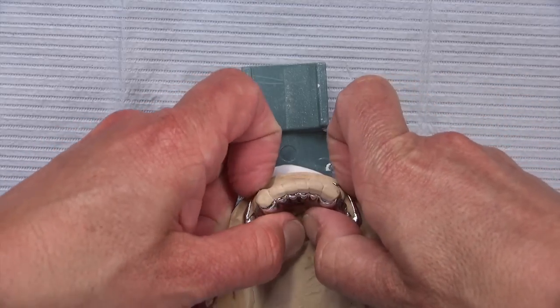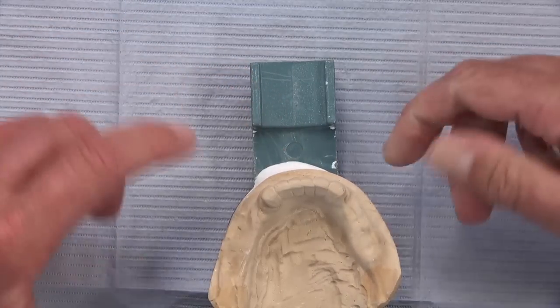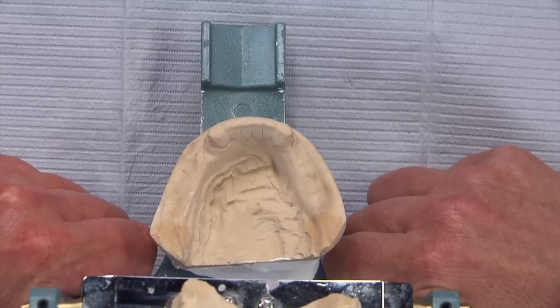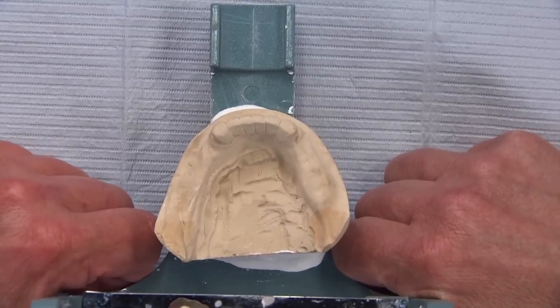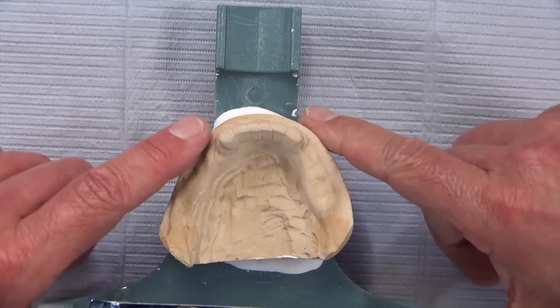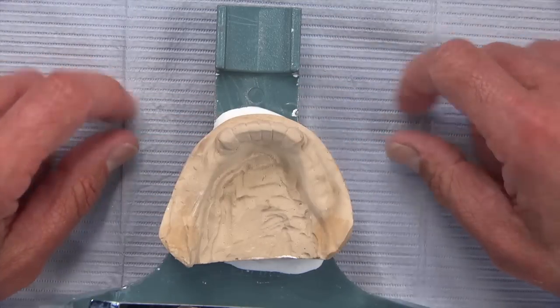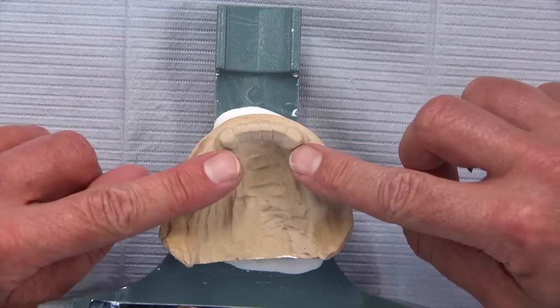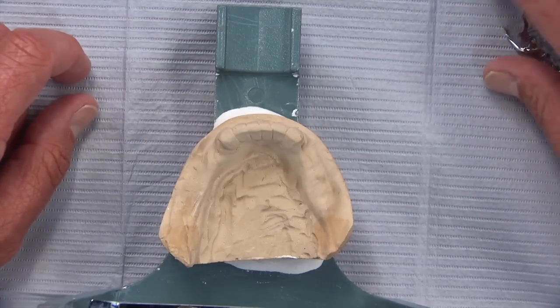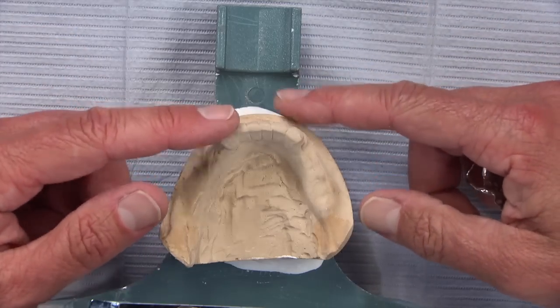A lab has fabricated this bridge and unfortunately no thought has been given to a future possible removable partial denture, a Valplast, a flipper, or anything. Either the lab didn't ask the doctor, or asked and the doctor said no. Doctors will tell me, 'Well, my patient can't afford that,' and I'm like, 'Well, they could win the lottery between now and then.' It's always safer to have rest preps. Anytime a bridge like this comes in as a PFM, the combo department is all over it calling the doctor and almost trying to talk him into those rests.